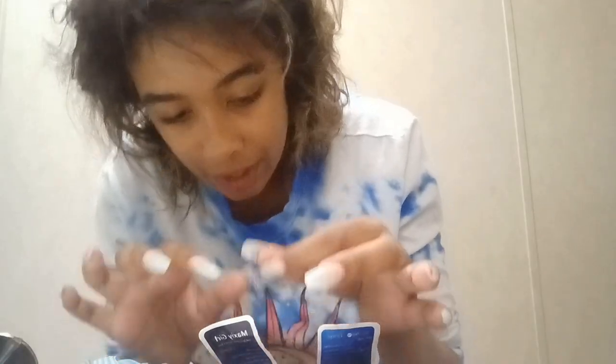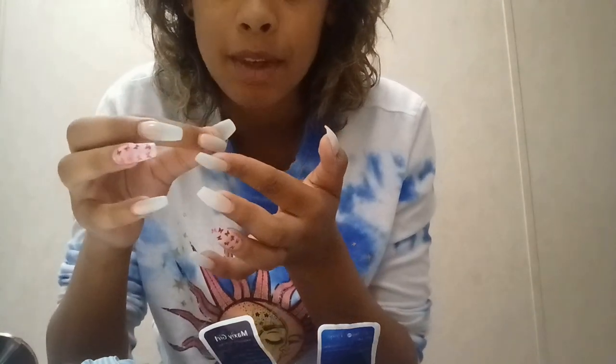Okay, so that's the contact. I'm gonna tip it like this — oh my gosh — okay, like this. And now we're gonna — oh my gosh — if I can do this wrong... I'm gonna put it in. I'm gonna look in the mirror. I want to do this. I cannot shake.